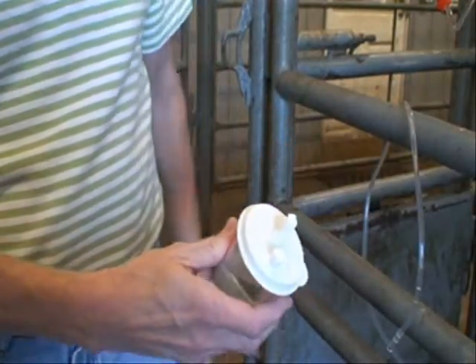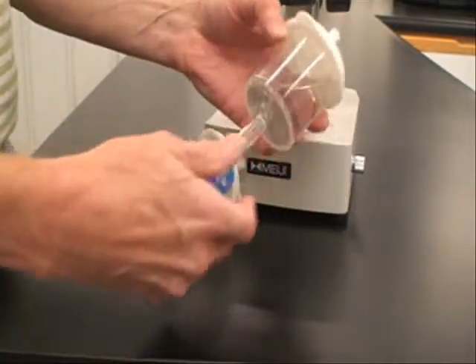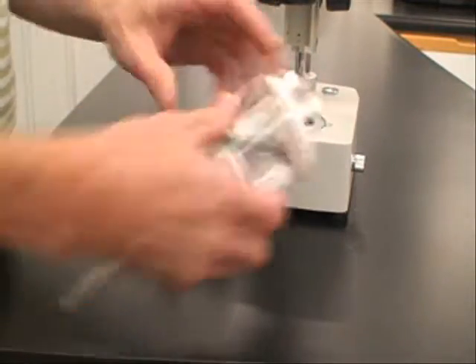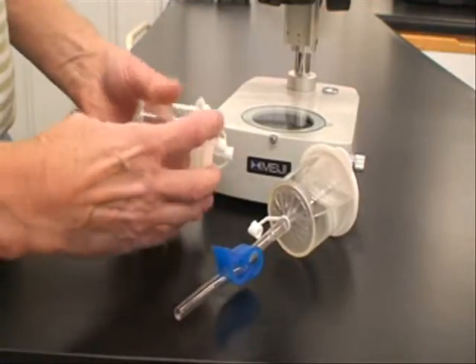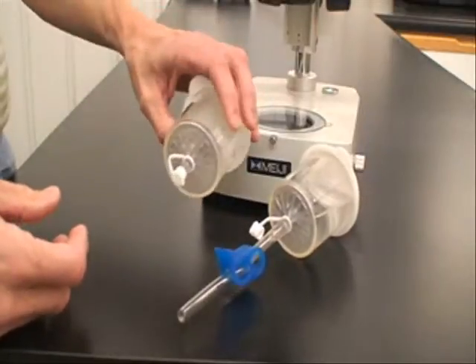So it's a closed system and you can now go into the microscope. When you're finished flushing, you have two presentation options. One, you can keep the pigtail on the device and bring it in closed like this. Some people may elect to remove the pigtail and just use the pinch clamp on the bottom with a little cap to close the outflow port — a little more compact package you can put in your pocket.